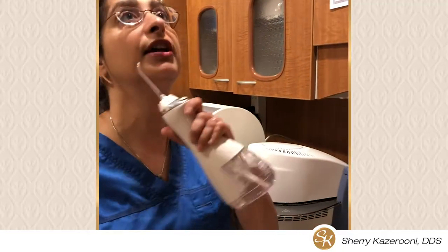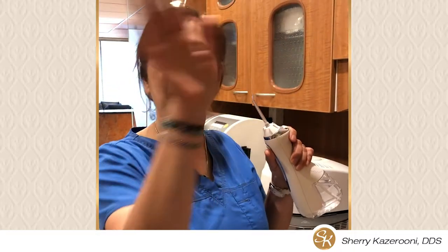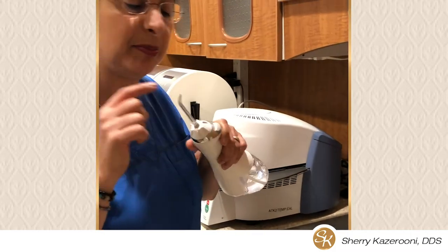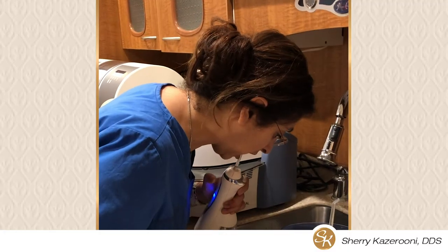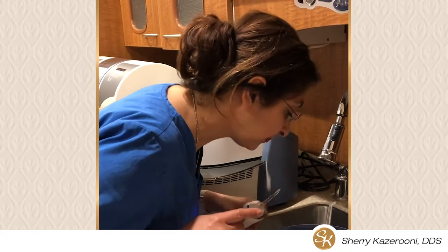You basically circle around. Before you turn it on, don't look at the mirror — you'll have a Picasso painting on the mirror and your significant other is going to be upset about it. Make sure you use it parallel before you turn the button on. You bend down, put the tip in the mouth, and just feel the water going. You hold it parallel to the teeth and run it slowly back and forth and let the water pressure clean up.